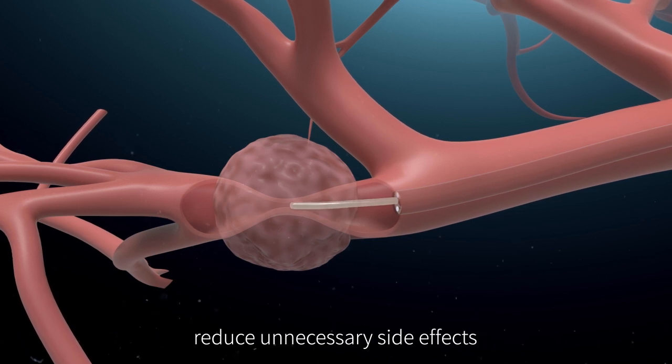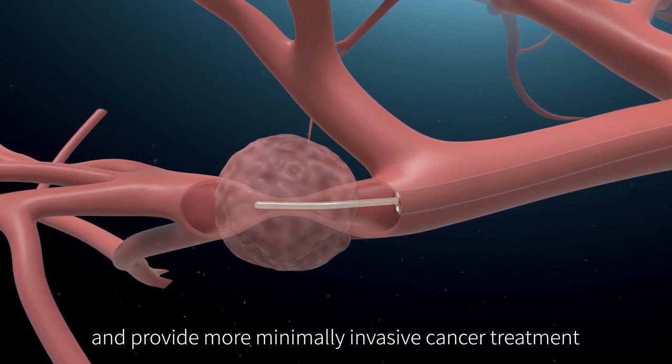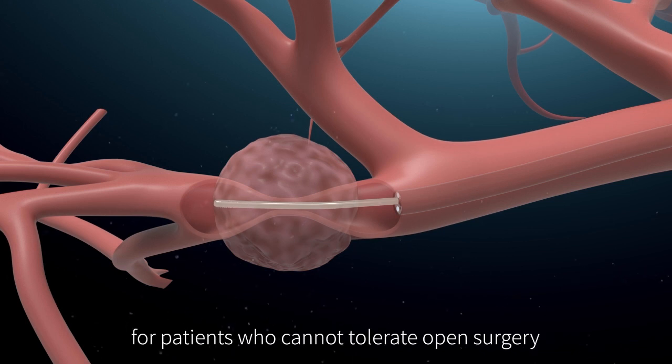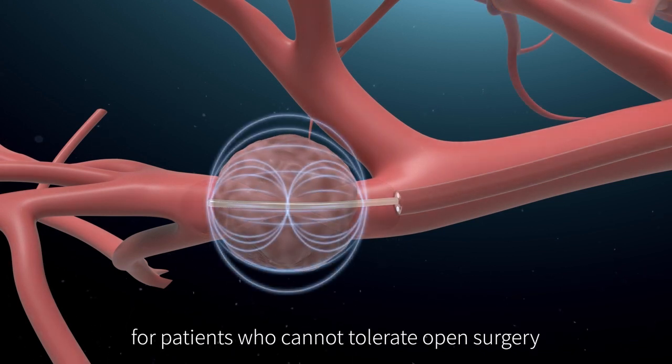This reduces unnecessary side effects and provides more minimally invasive cancer treatment for patients who cannot tolerate open surgery.